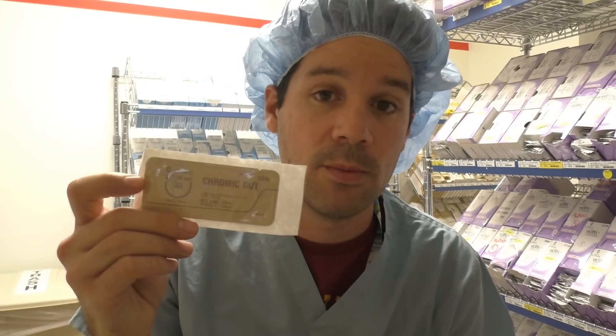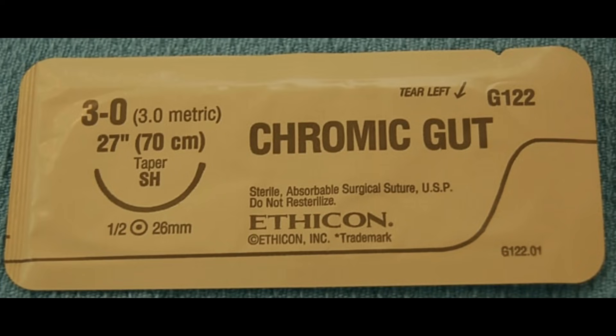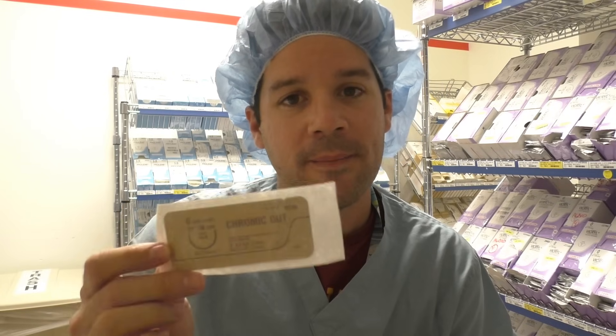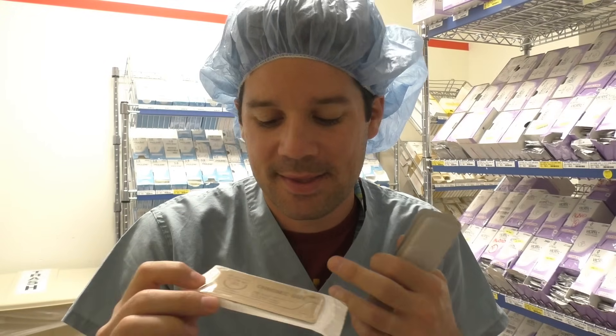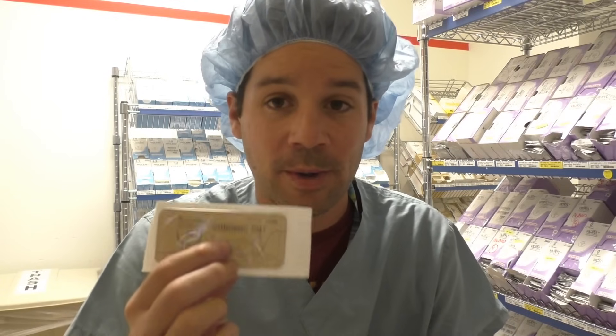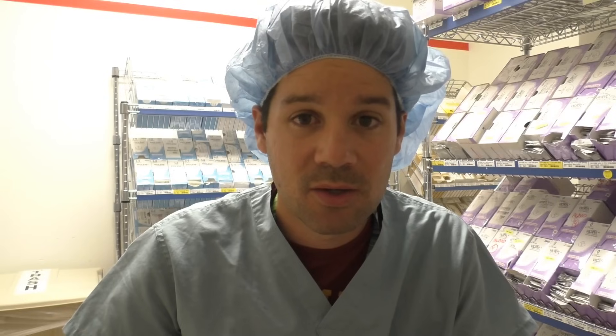The third stitch I have is the chromic. It's got brown packaging and when you open it up, it has a very pungent smell — it sits in an alcohol-type solution. This is actually made from the intestines of an animal — it says chromic gut. It has a very interesting smell. This is highly absorbable, which is fantastic. Where I've seen this used mostly is circumcisions, and pediatric cases.